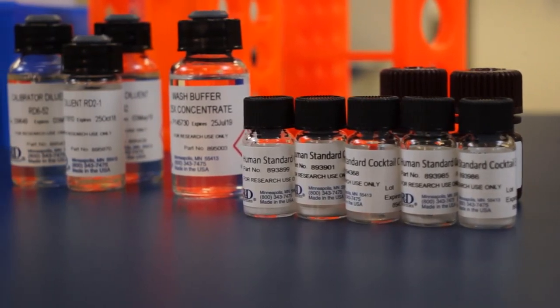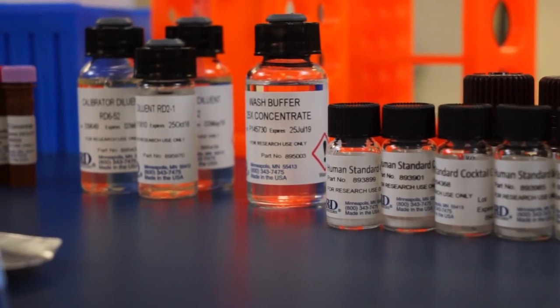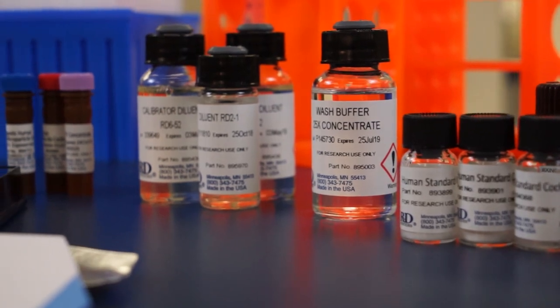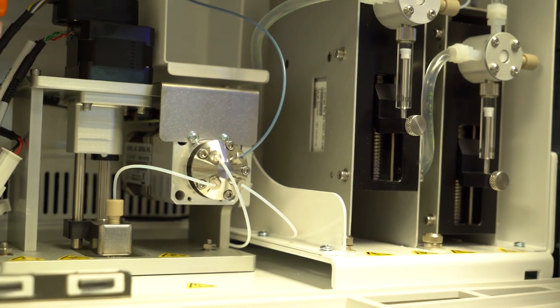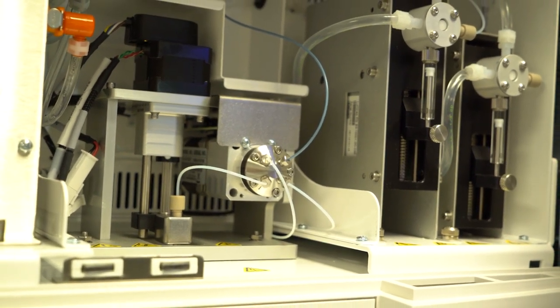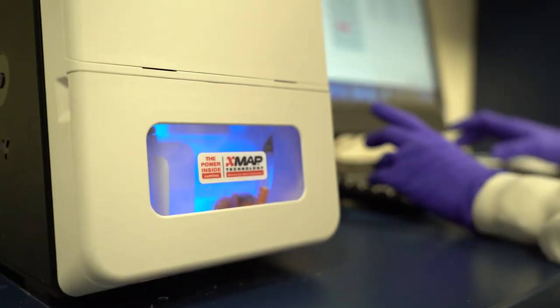First, bring reagents to room temperature. This is important for optimal performance of the assay. While the reagents are warming, prepare your instrument. We recommend calibrating the instrument within one week of running the assay, and Luminex recommends that the instrument verification is performed the day of running the assay.